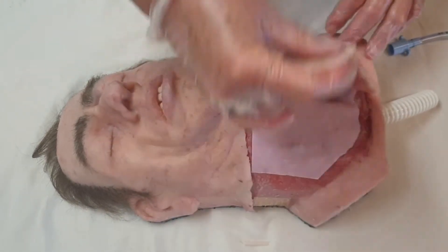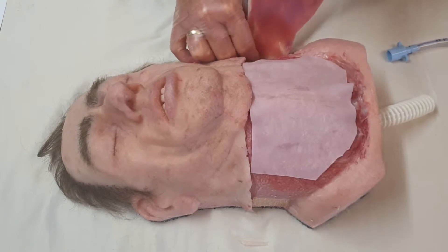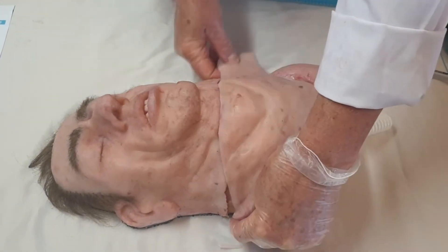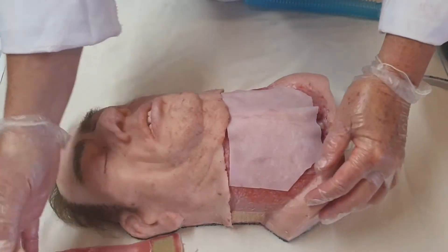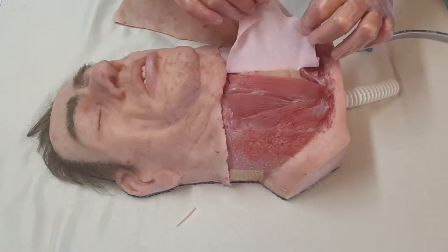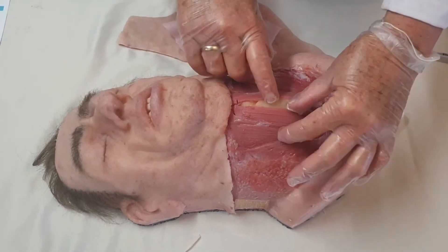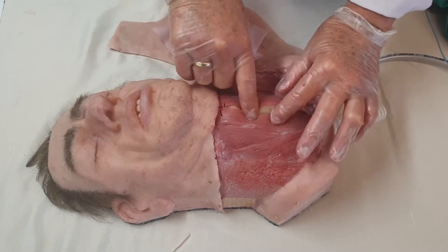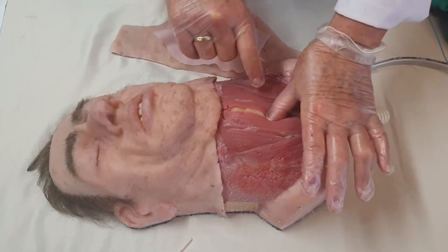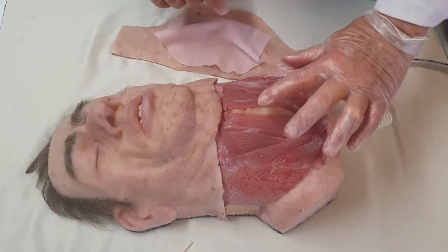The neck can be replaced by little pieces of velcro on the side, and just being replaced like so. Underneath that you see a membrane that is also removable, and underneath there you see the strap muscles sitting there and the fatty tissue bulging out in between.